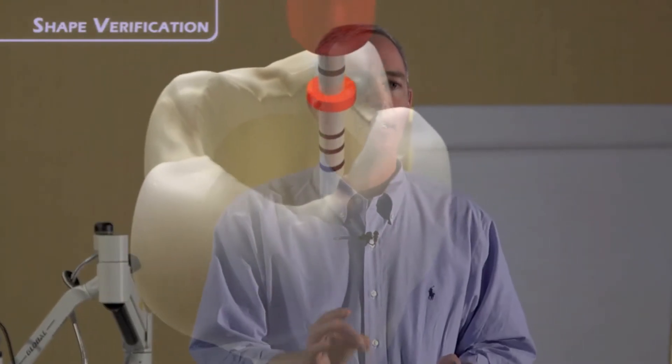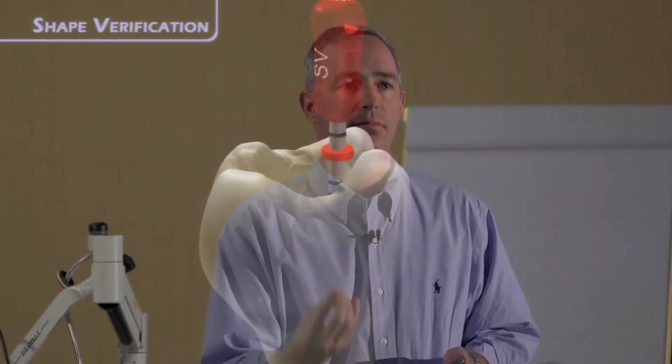How is this done? In the pack that you get the Guttacore in, there is a size verifier. It's nickel-titanium, it's active. What active means is if your working length is 20 millimeters, and you're size verifying a 30 Guttacore carrier because you've had a Wave One in — 25-08 at the tip — and at 19 and a half you meet a little bit of resistance, you can give a little spin, activate the file just a little bit, enhance that shape, and that will likely be the best, tightest fit.